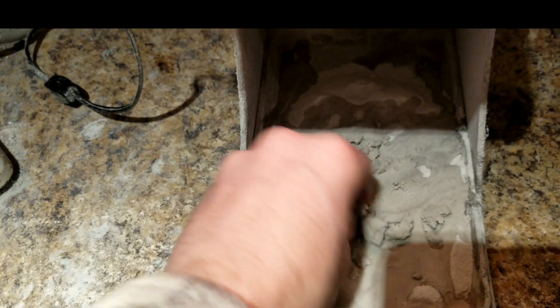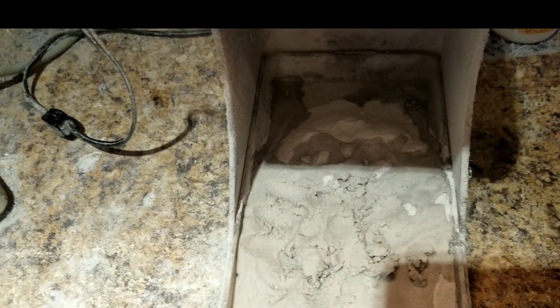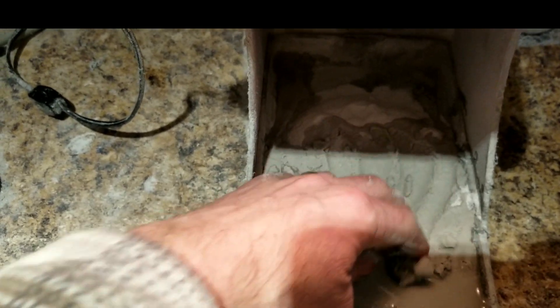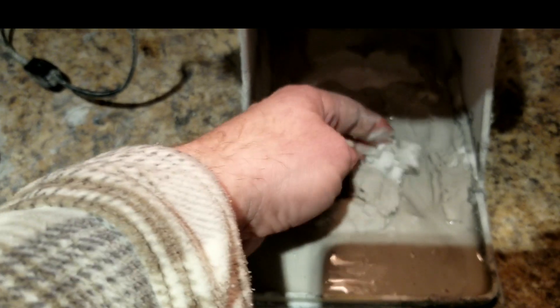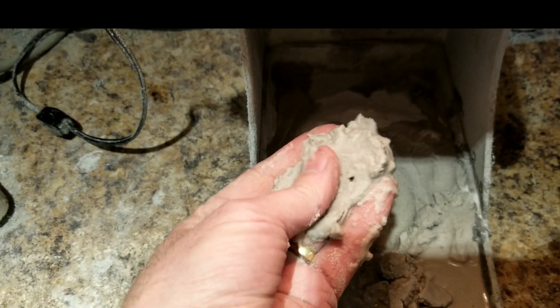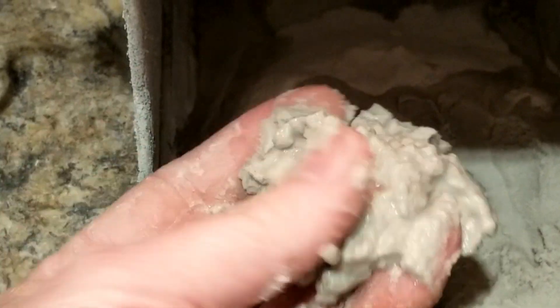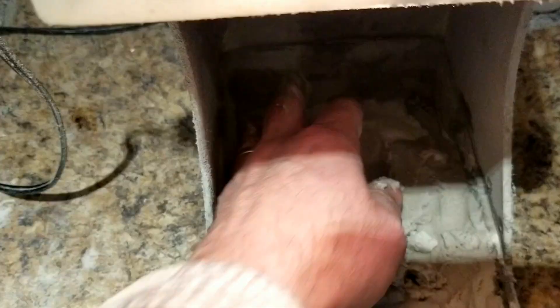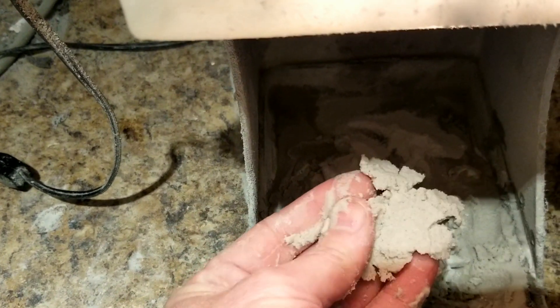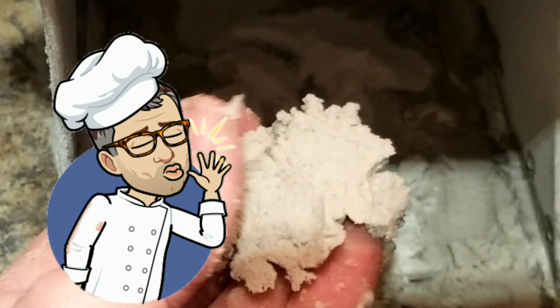Get in there — I can do a little bit better than that. There we go, let it soak in there. Brand new pumice. Now it's pretty wet right there. Let the new stuff absorb into it, because you want it to be not too wet but not too dry. Bring in this dry stuff, mix it up. You want it to be nice right there — that's perfect.